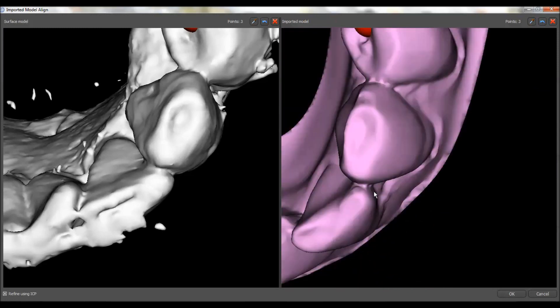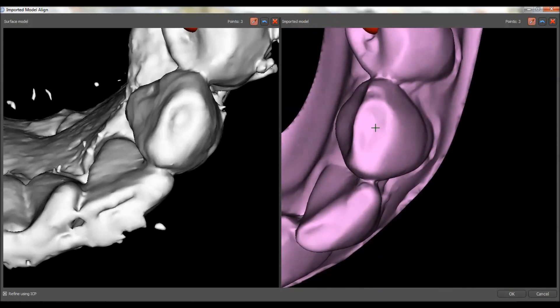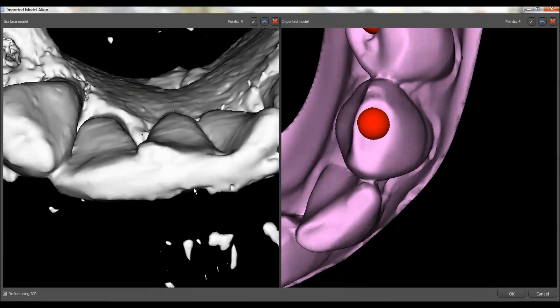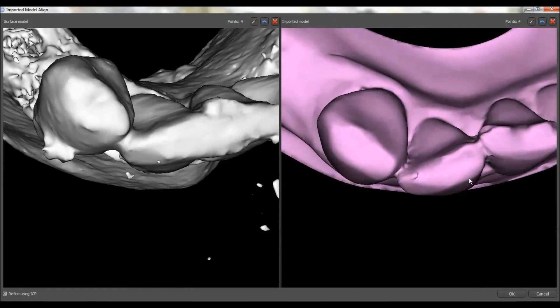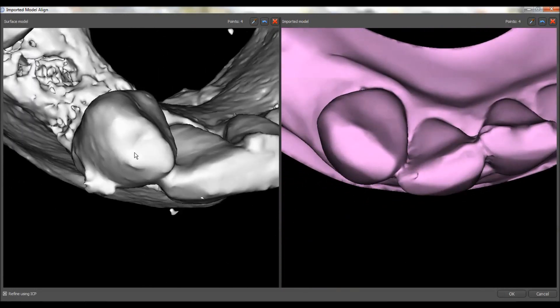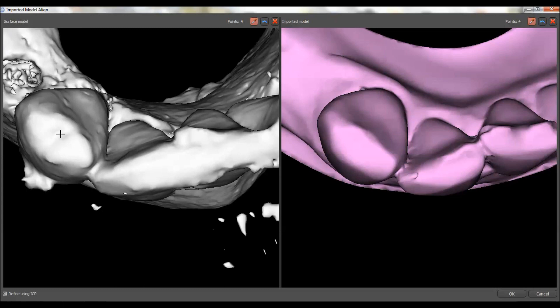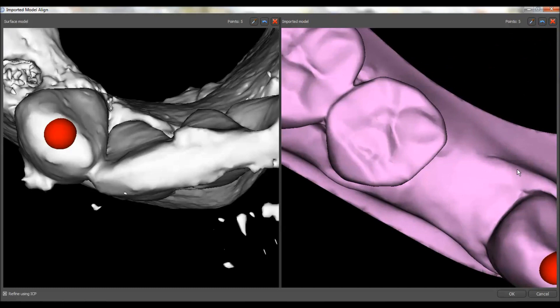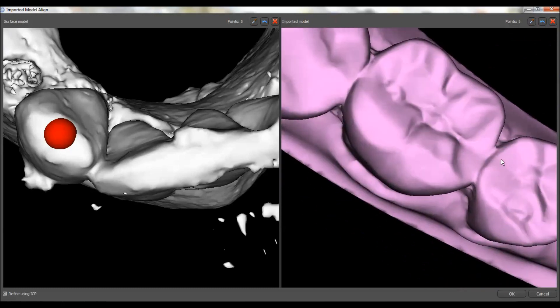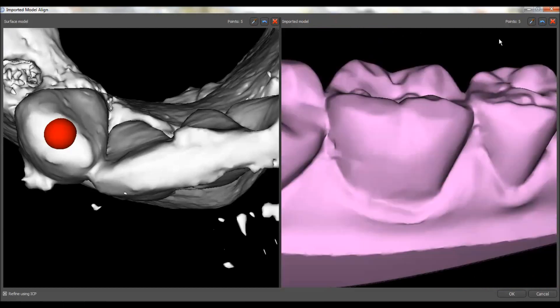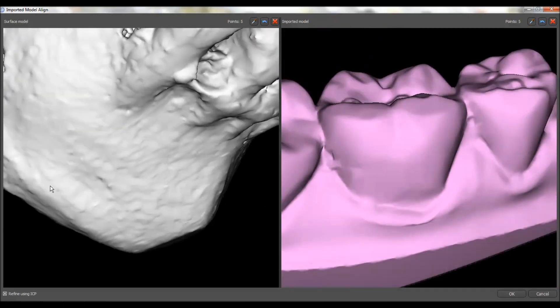We can proceed around the arch doing usually seven to ten points in this manner. I do try to pick these very carefully because your entire case depends on the quality of the stitch — if you don't get this part right, everything's going to be off. It's usually good to get some on the buccal surfaces and some on the lingual.